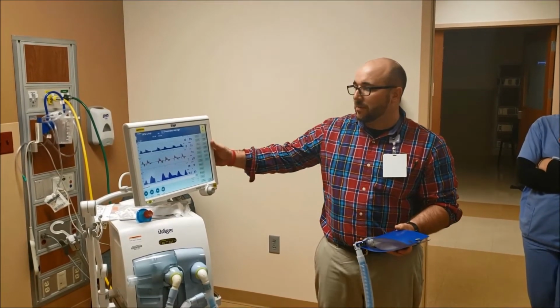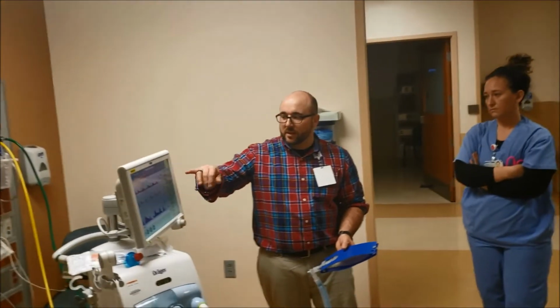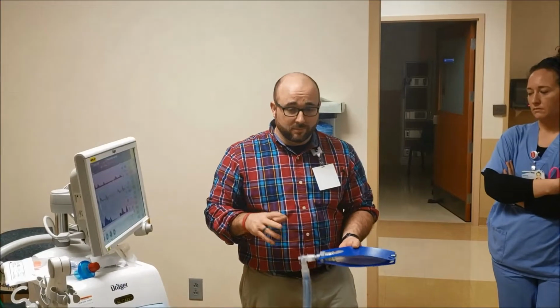So one thing that I'm always looking at with this is their exhale tidal volume. You want that to be about 8 to 10 milliliters per kilogram. Generically 450 to 700. So if they're taking little squatty volumes, it's not a good sign, because when they get small volumes and they get a high rate, that means they're failing. So you're looking for large volumes, and that's how you can coach them.